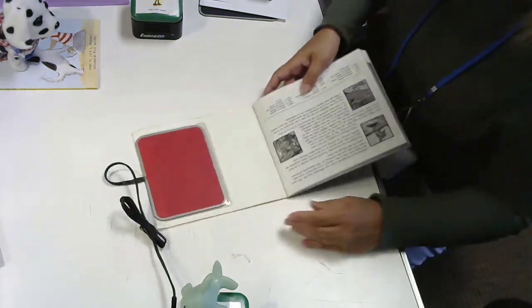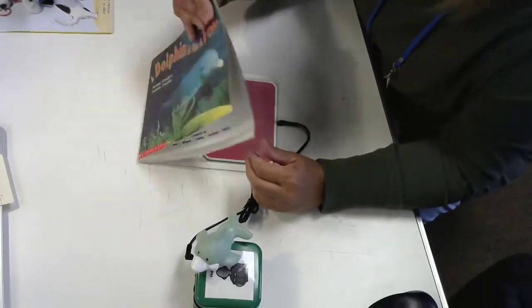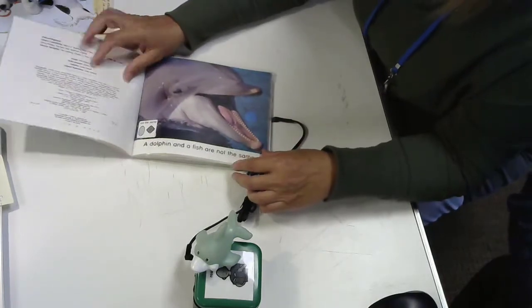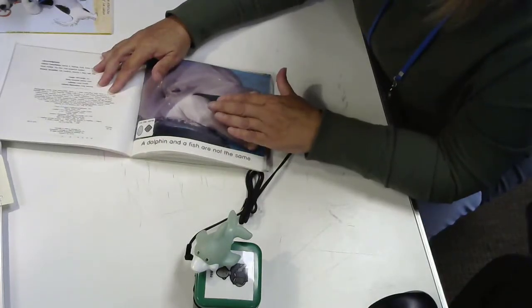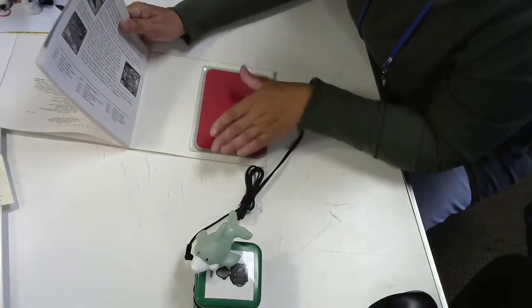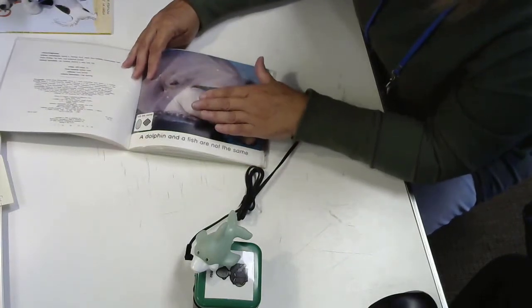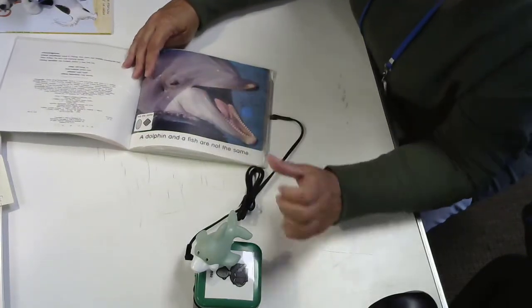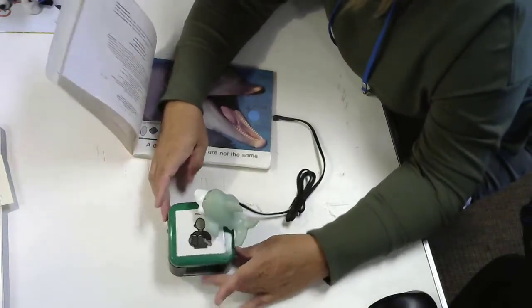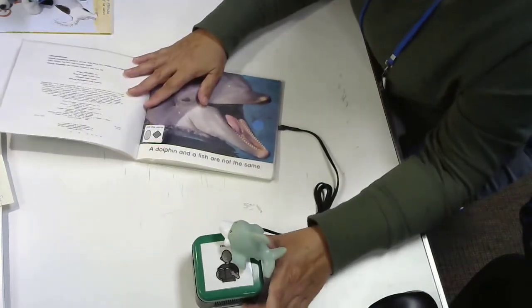As you can see here, I put this in the back of a book. So now they can access the pages of this book simply by pressing on the page. Because this is a large switch, basically no matter where they push, they will activate it. I have pre-recorded some of the pages of this book into level 1, so I'm going to change to level 1. Now we're going to read the story.